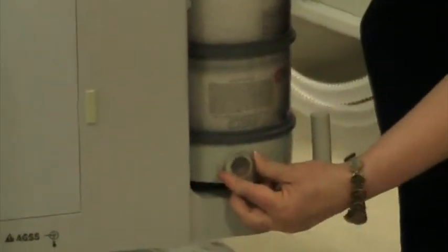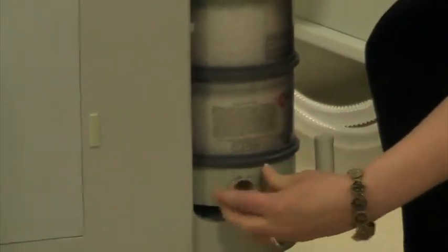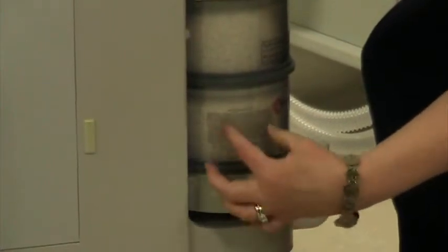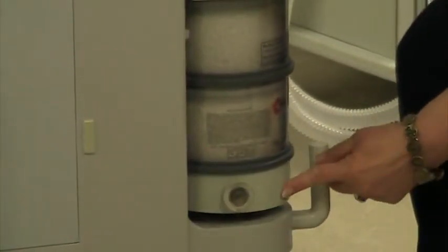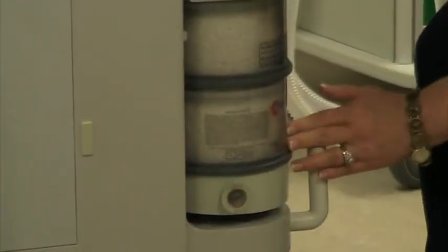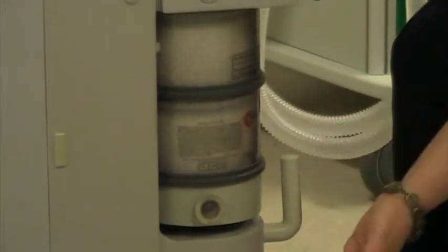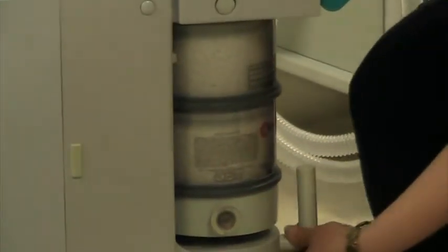This right here is a valve that you can turn which will let any water that has built up drain out of the receptacle. It's nice to put a little towel down there to be able to get that.